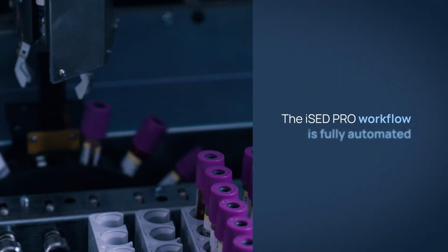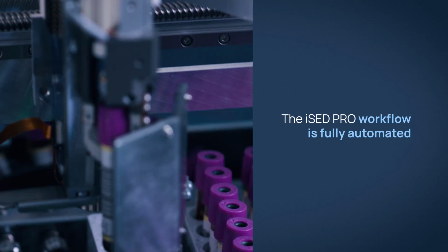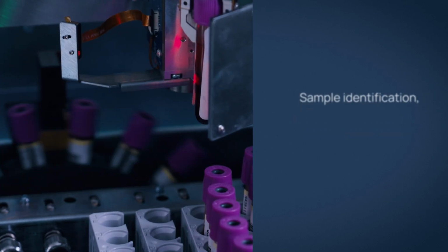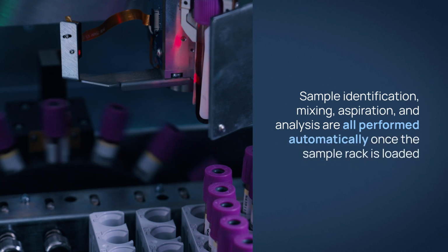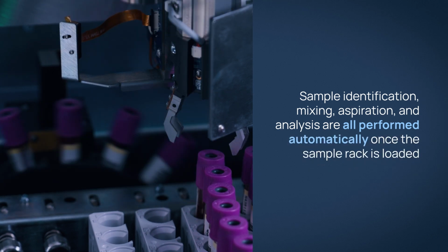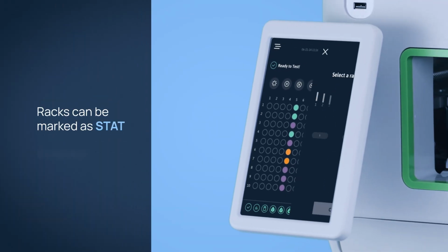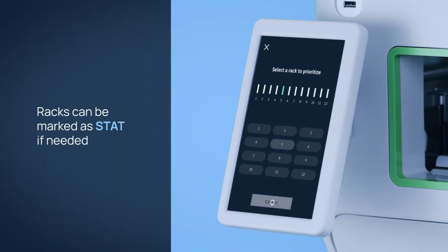The iSED PRO workflow is fully automated. Sample identification, mixing, aspiration, and analysis are all performed automatically. Racks can be marked as stat if needed.